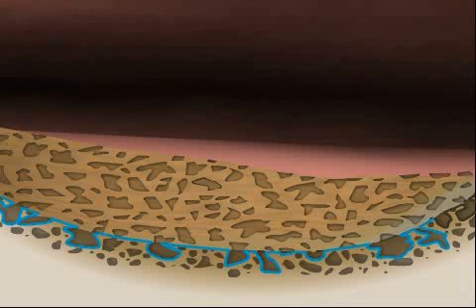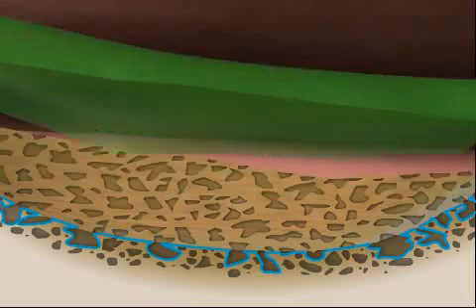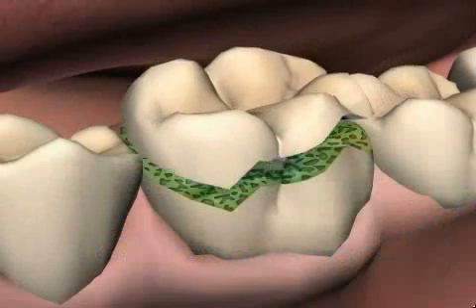In the animation, you see what happens if, for example, saliva and or blood — shown here in red — comes in contact with the tooth. The porous surface is immediately closed, and the glue, shown here in green, can no longer penetrate the structures created earlier. The adhesion, and thus the tightness, of the filling and inlay are greatly reduced.